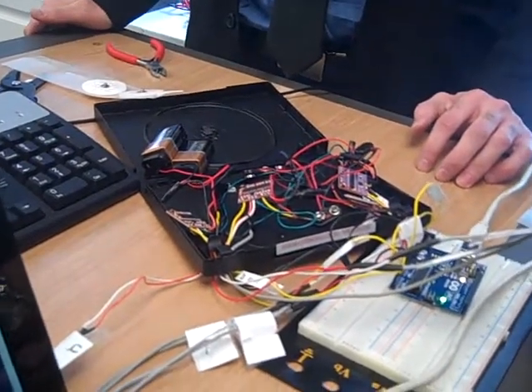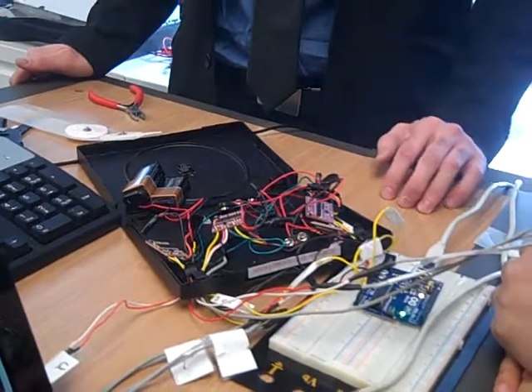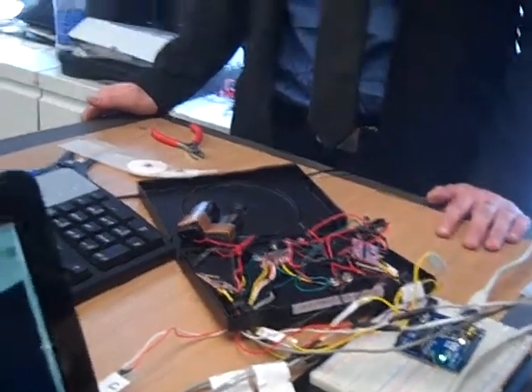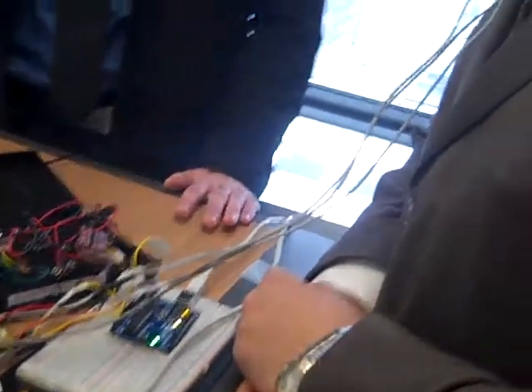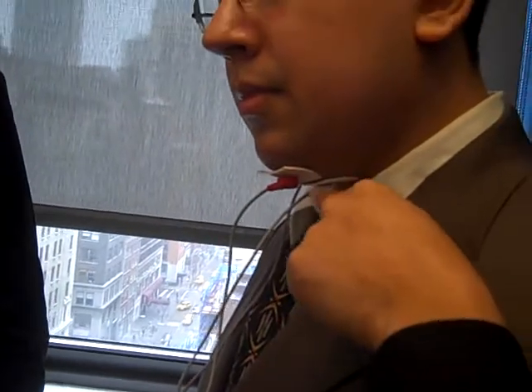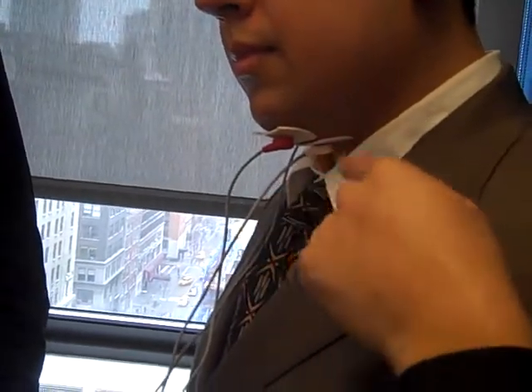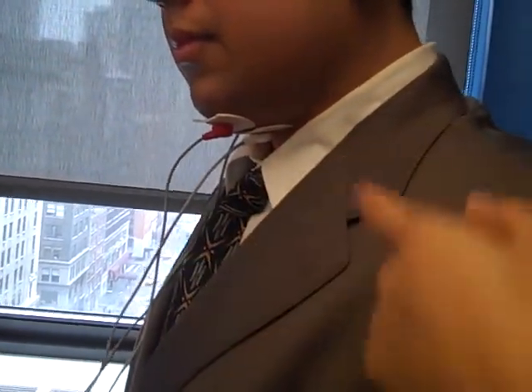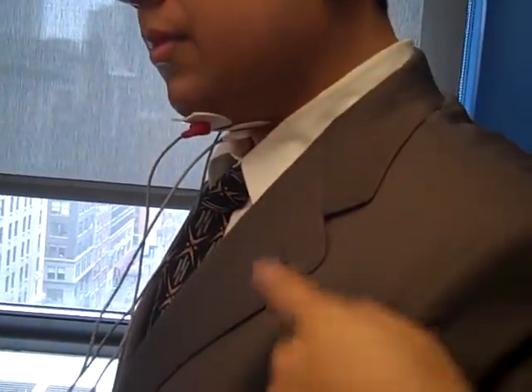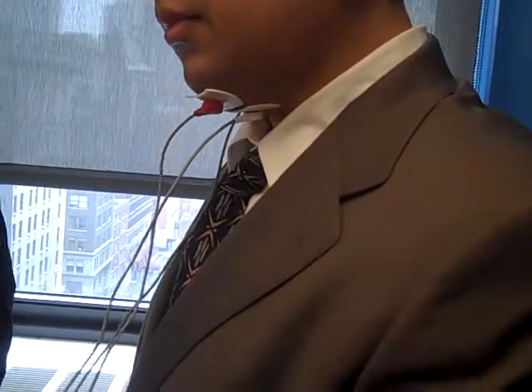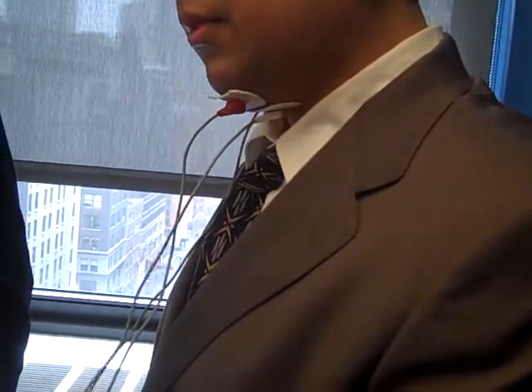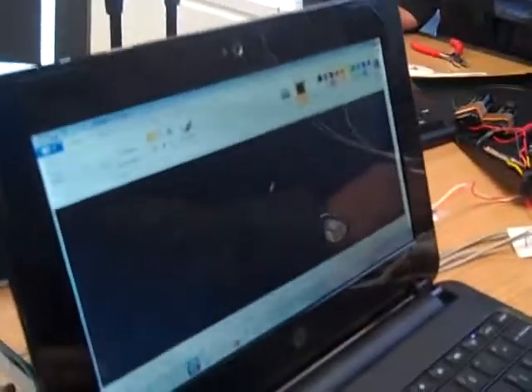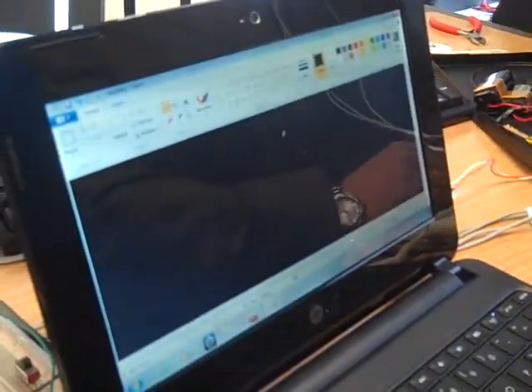So could we take a look at how it works? Definitely. So basically, as here, we're demonstrating stuff one at a time. So we have one electrode hooked up here to his chin muscle. So this could actually generate particular movements. So when he flexes, just flex and we'll show on the screen later. So that's a flex here. And now when you focus here on the screen, you should move it up.